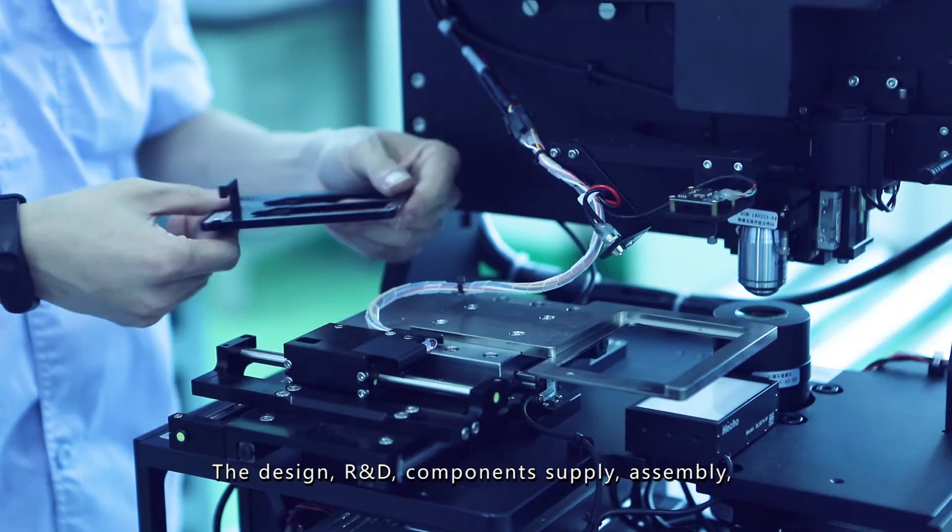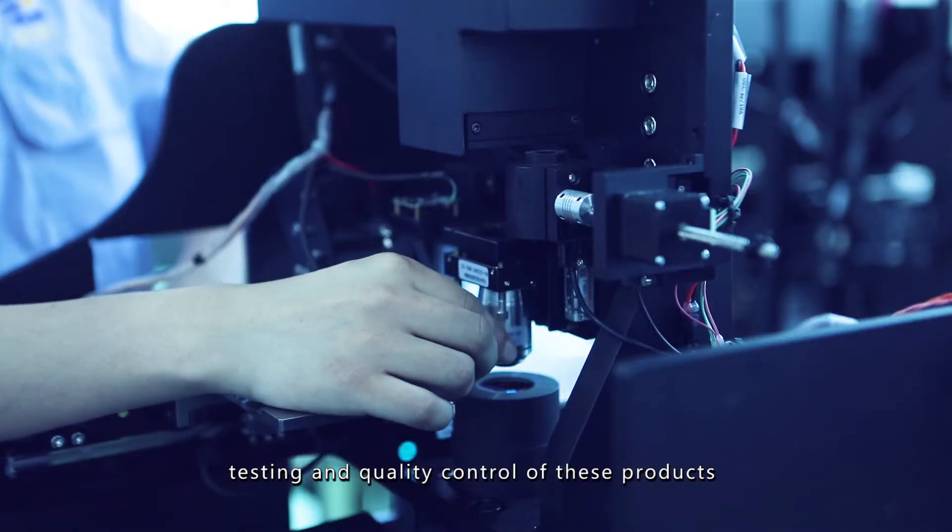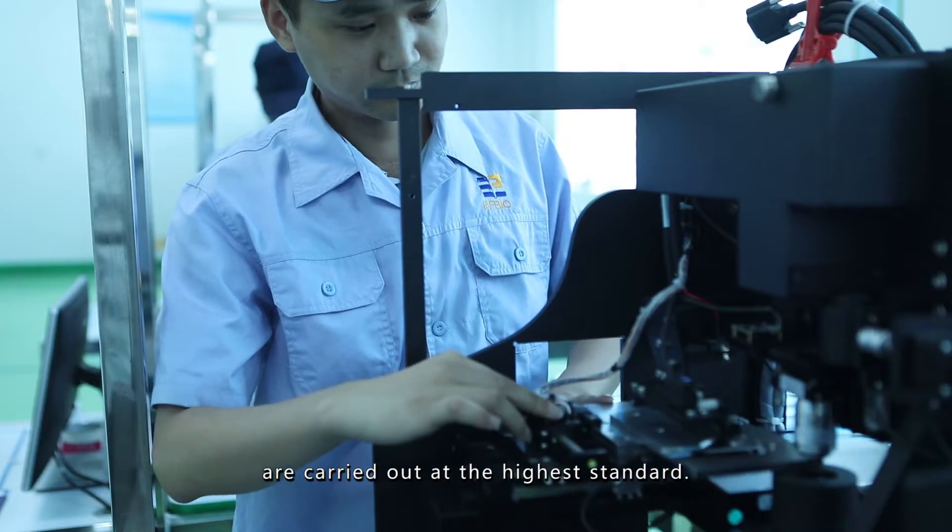The design, R&D, component supply, assembly, testing and quality control of these products are carried out at the highest standard.